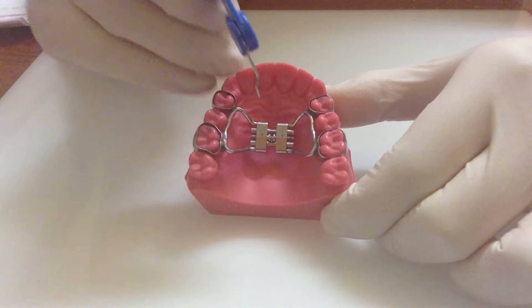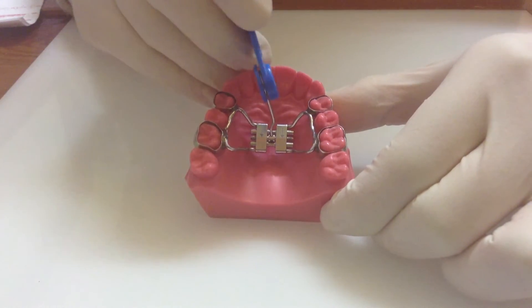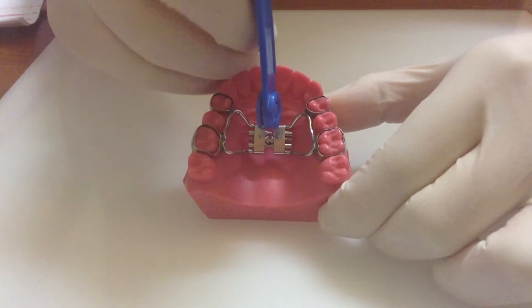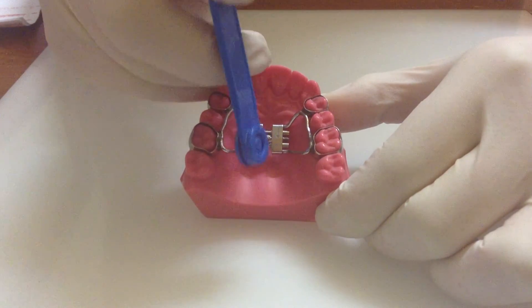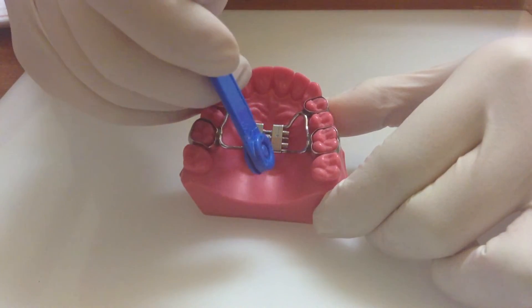It's important to do a full rotation, because if you only turn halfway and then remove the key, you won't see the next hole for the next day. So remember: a full turn, all the way.